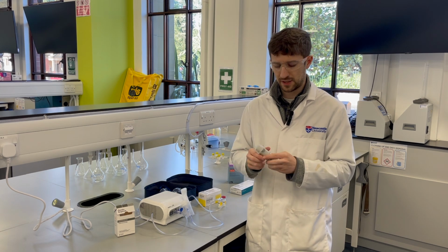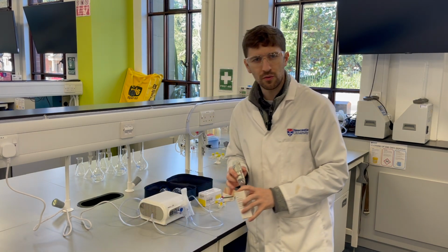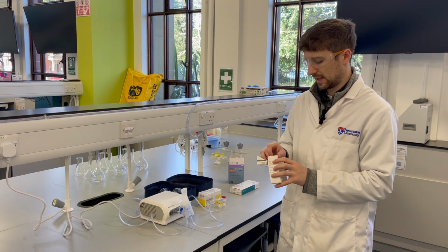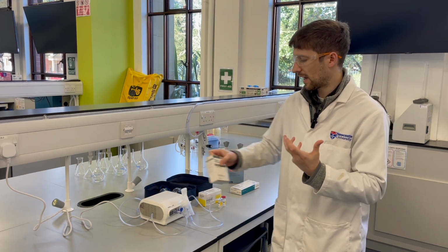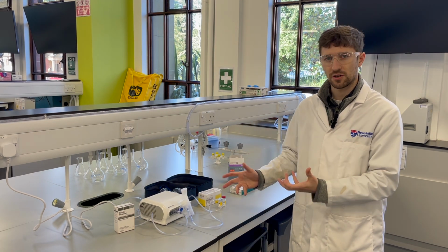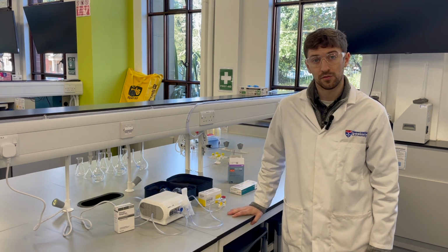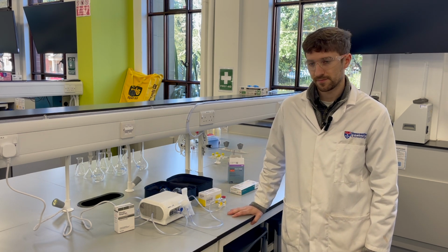In the notes, you'll see that the Respimat can deliver drugs much more efficiently than the nebulizer, and I would like you to postulate why. That certainly will become clear in a visual way when you operate both of these formulations.